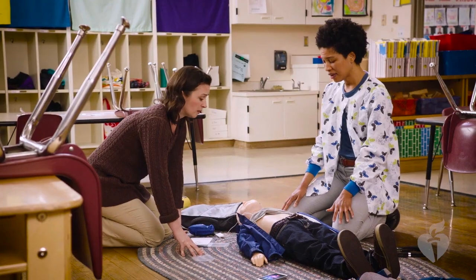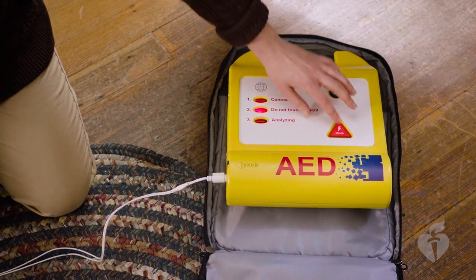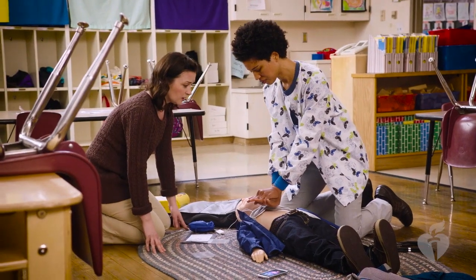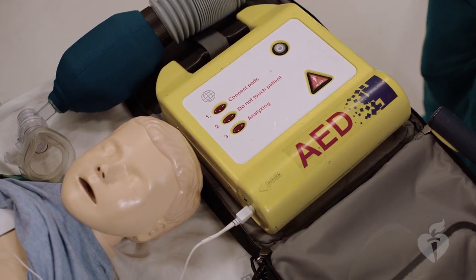Some devices, however, will allow chest compressions to be performed during the charge phase. Providing compressions during the charge phase is optimal, but be familiar with the devices you have access to so that you'll know whether to provide compressions during this phase. The rescuer should again repeat the clear command to those nearby and visually confirm that no one is touching the child, not even the person in charge of giving breaths. Press the shock button. The shock may produce a sudden contraction in the child or infant's muscles. Push the shock button now.